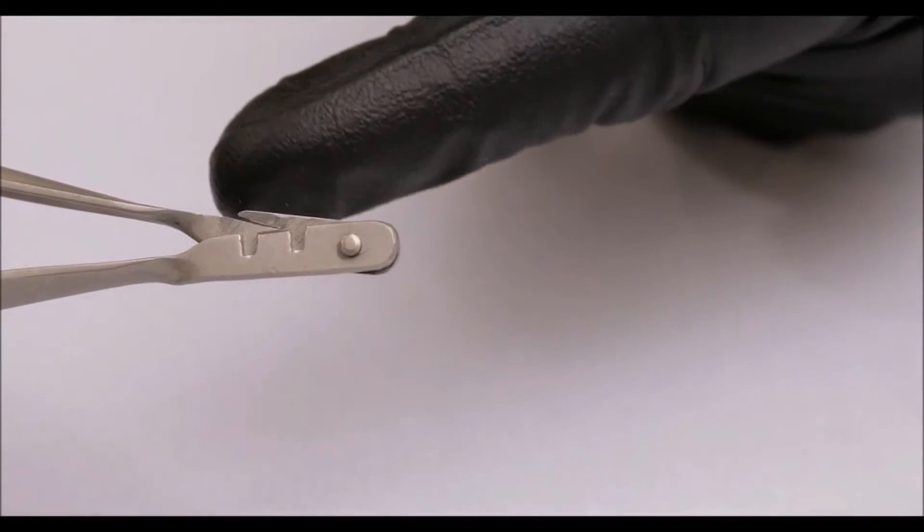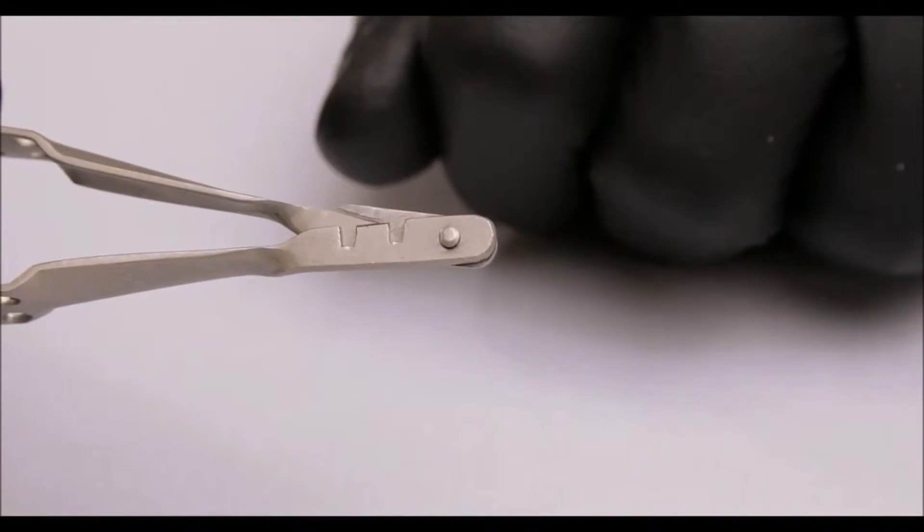A single blade, hidden and protected by the opposing side of the instrument, this is perhaps the smartest suture cutter out there.